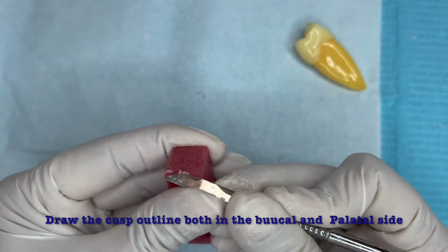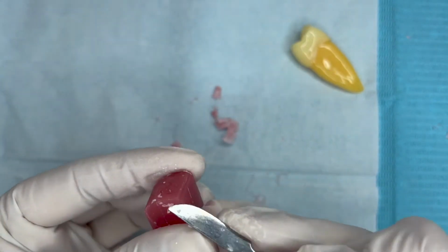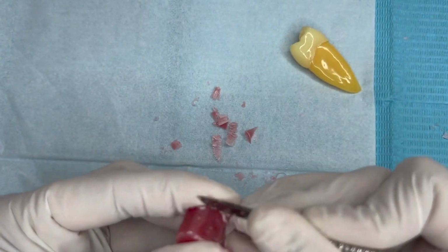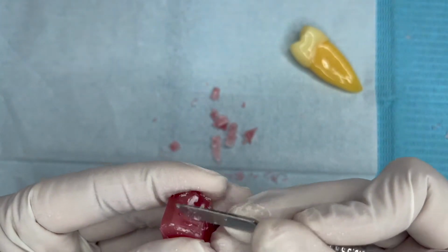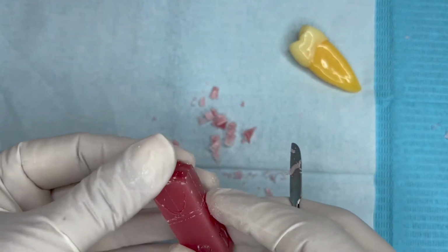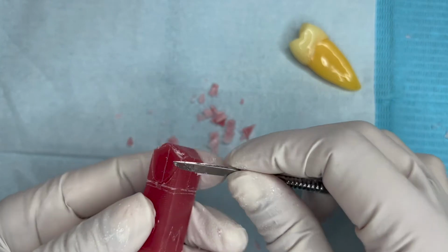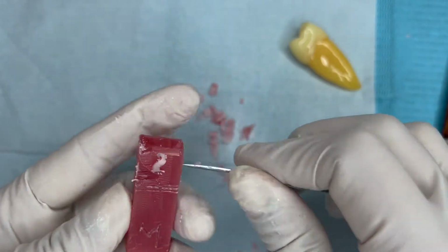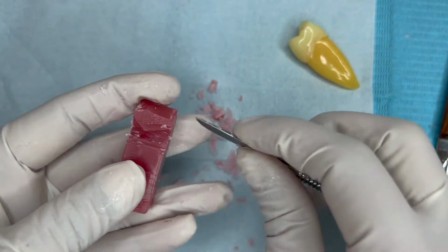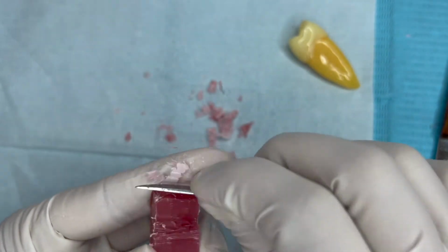Start defining the cusp tip by removing the wax. Also, start removing the proximal side and bring the shape. It will be similar to the initial steps of carving of the canine.